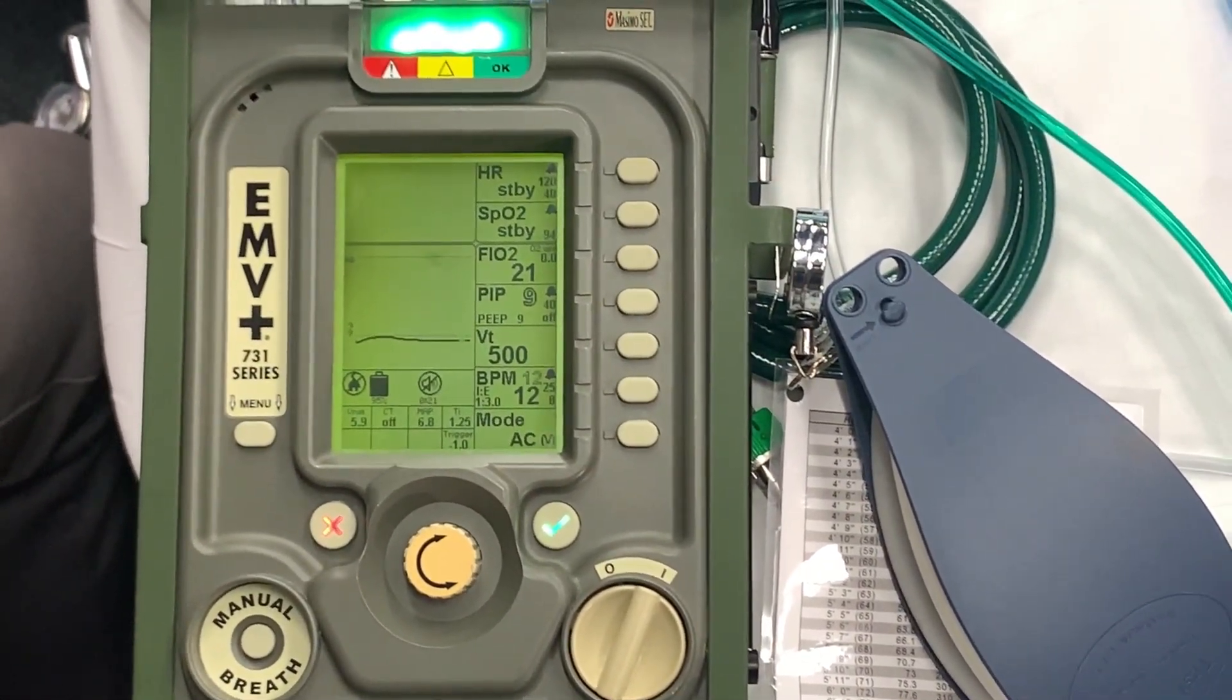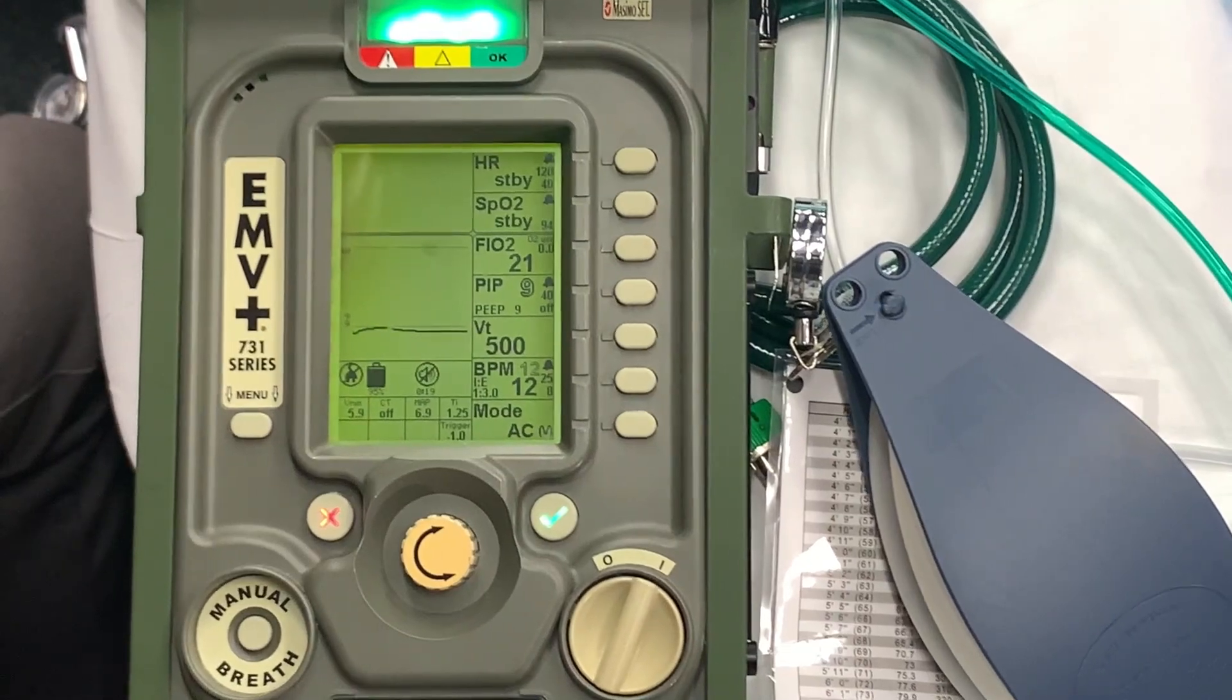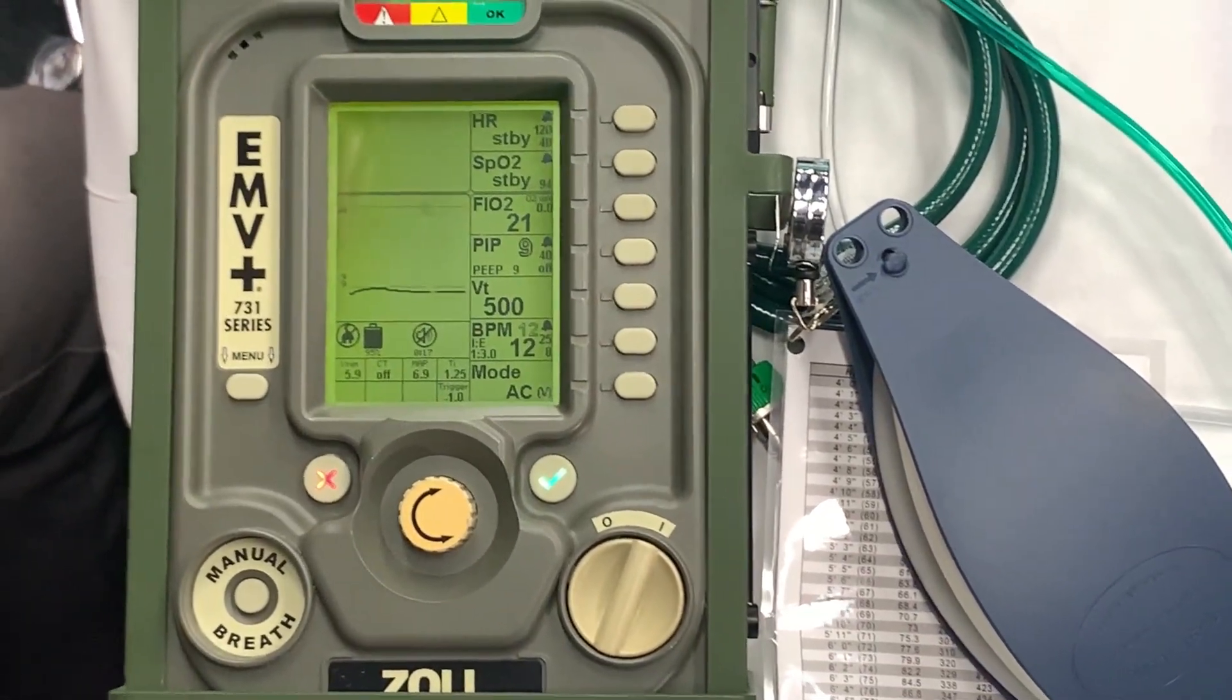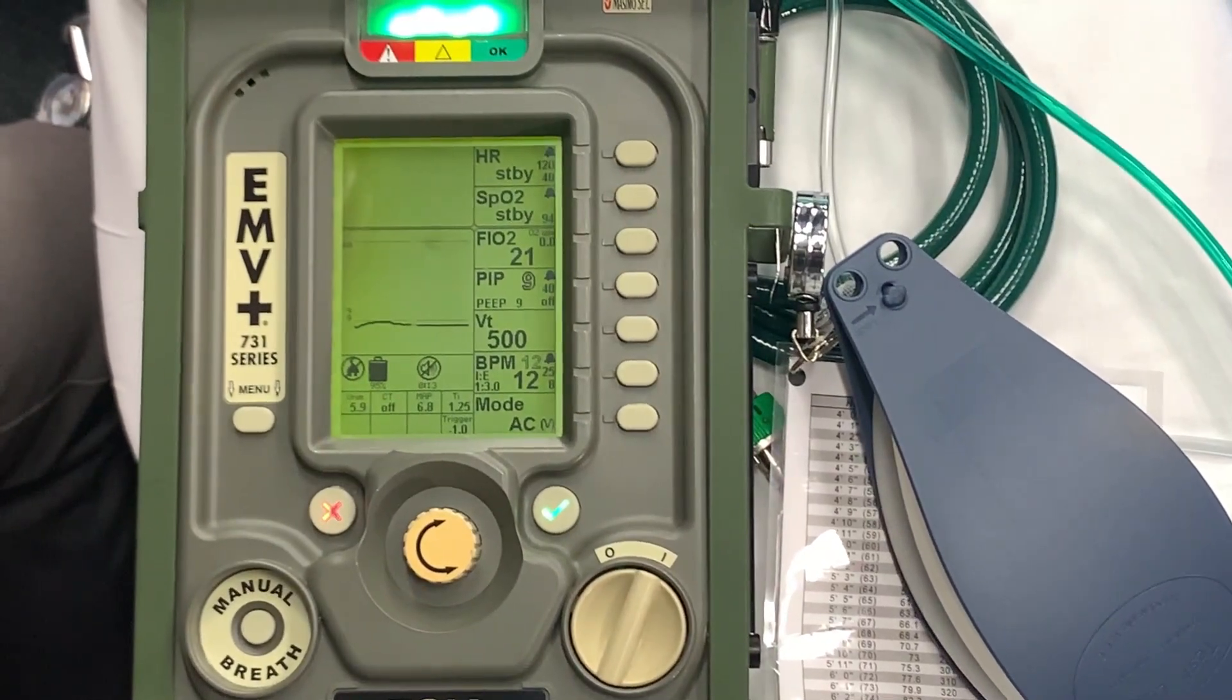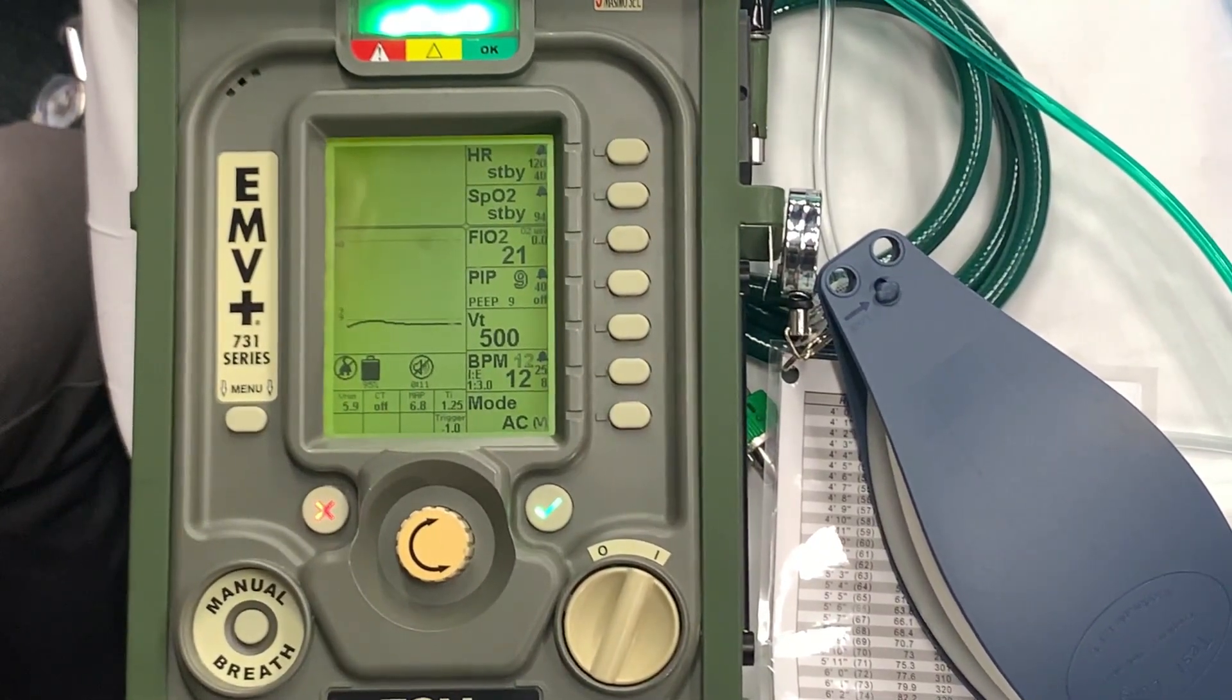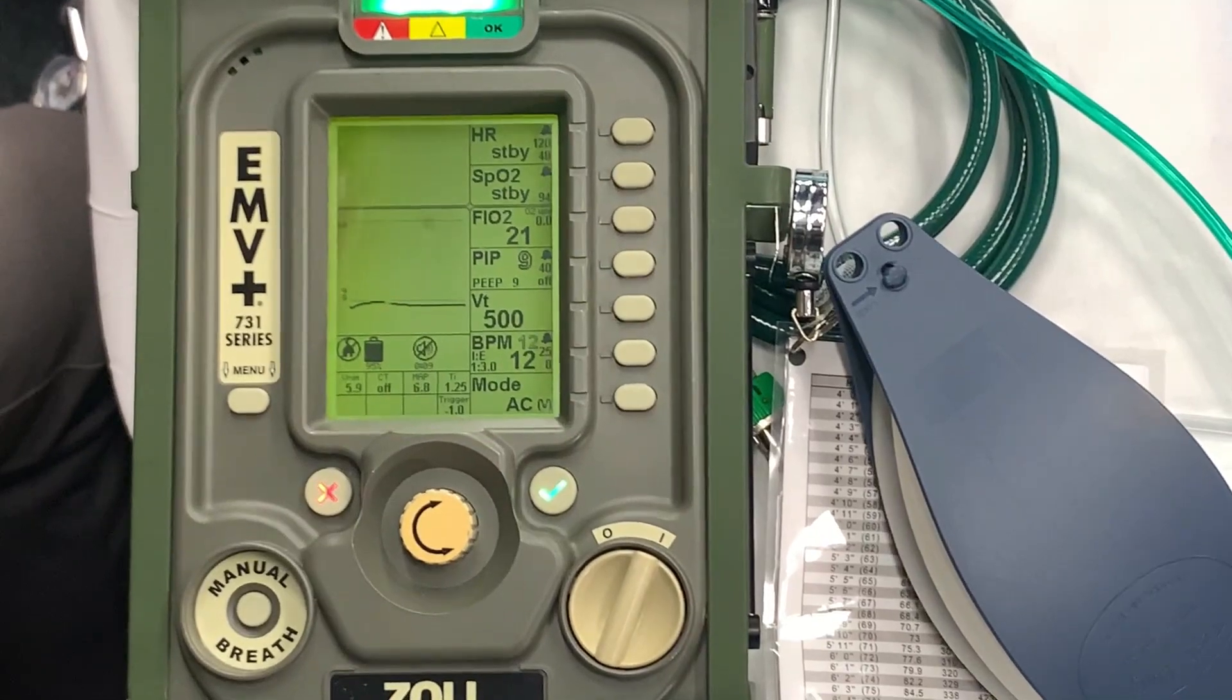All right, so now going back into the ventilator settings themselves, we're going to use Zoll EMV as a demonstrator. And what we want to talk about is just the different settings you can set your patient up on in assist control and how to get there using the Zoll EMV.